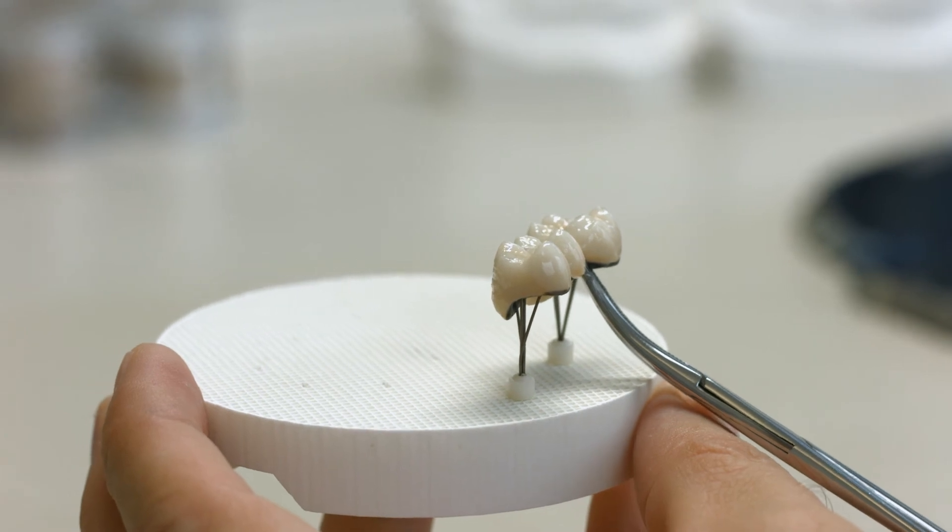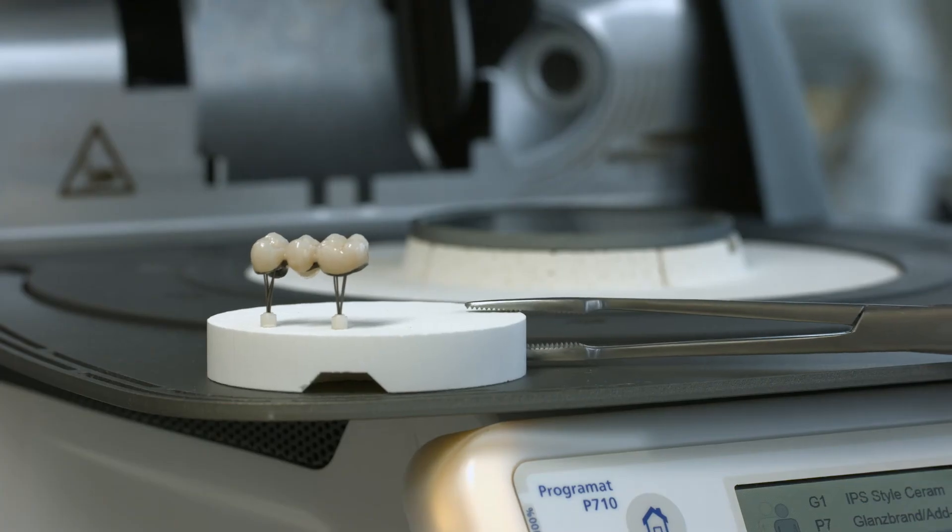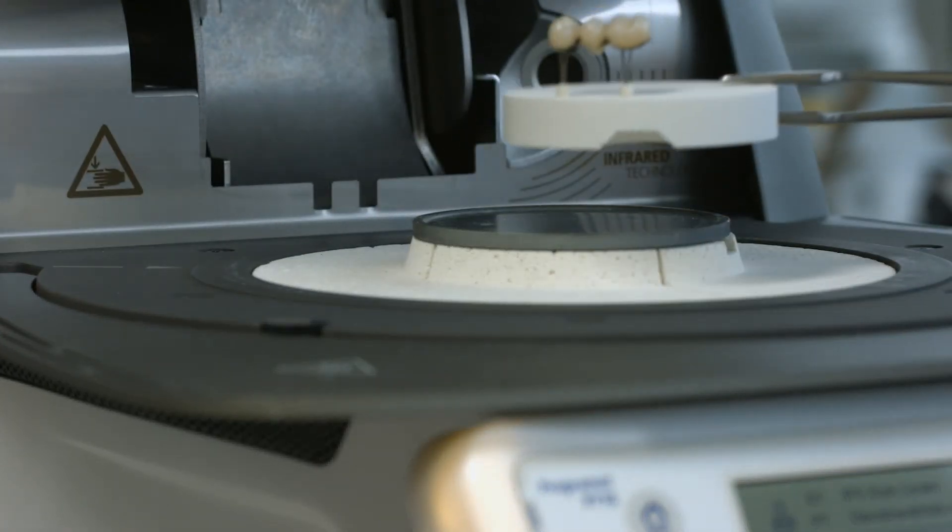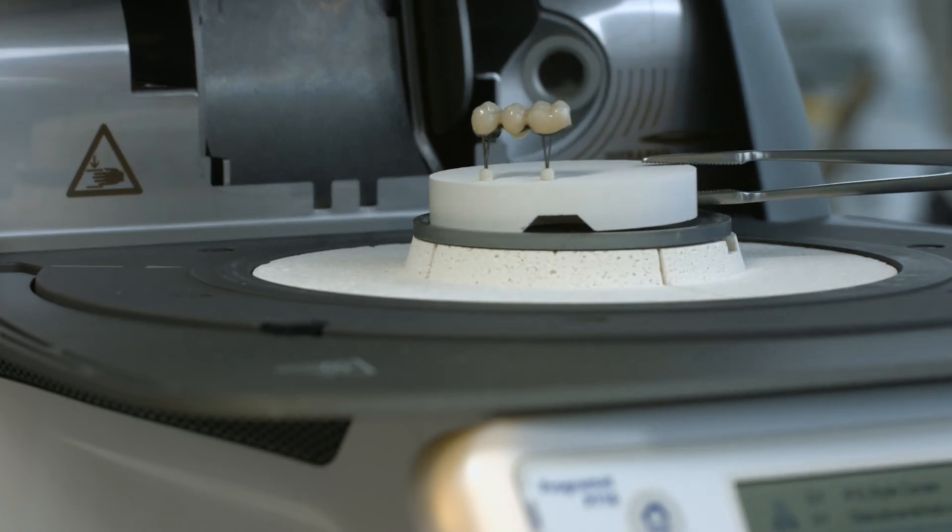Observe the given firing parameters to fire the glaze. The resulting restoration surface has a natural-looking sheen and a light texture.